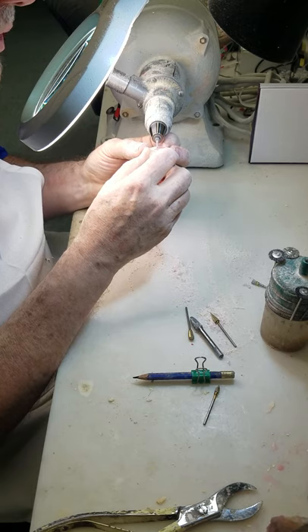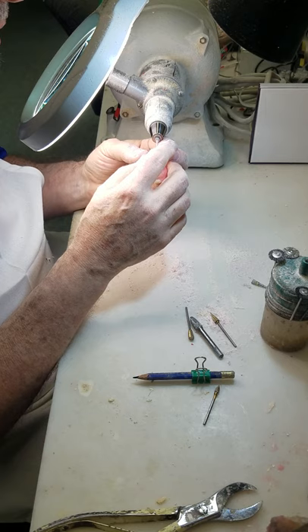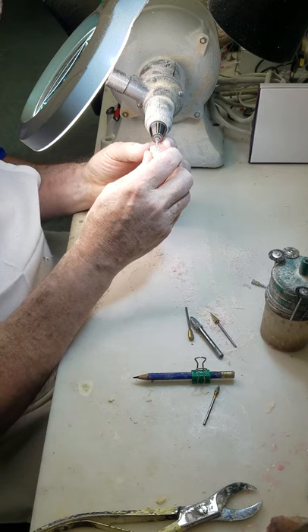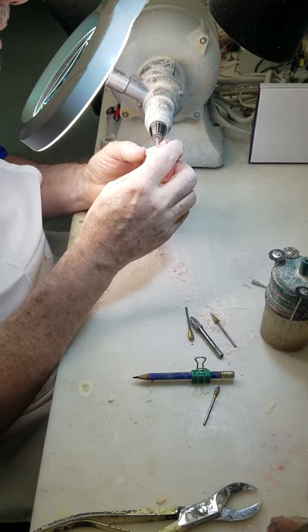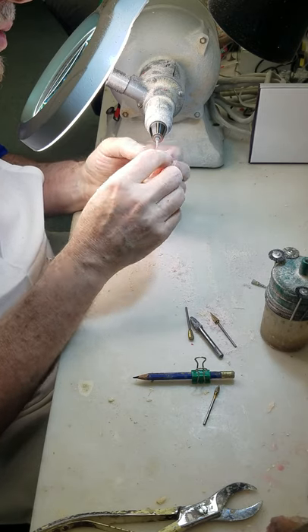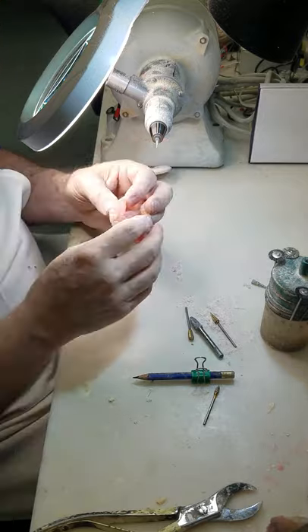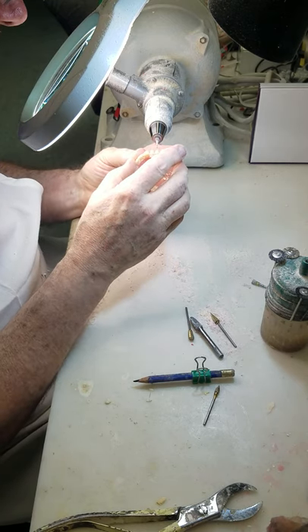I found that if you spend more than two minutes stippling, like right now I'm not really stippling — I'm re-carving the neck of the tooth. I had a little more of a ditch in it than I like, because patients who are getting dentures aren't really known for their hygiene, and I don't like food traps, especially around the necks of the teeth. That's pretty much it — just a stipple. I see a line; I don't like lines. I like everything to be soft and rounded.